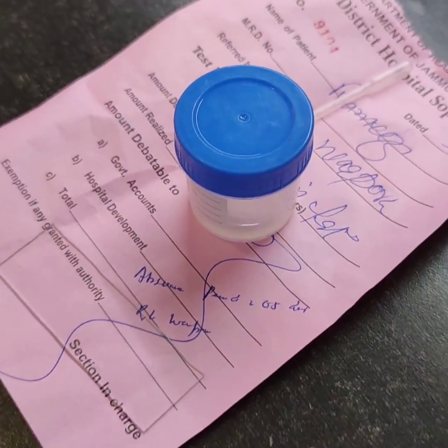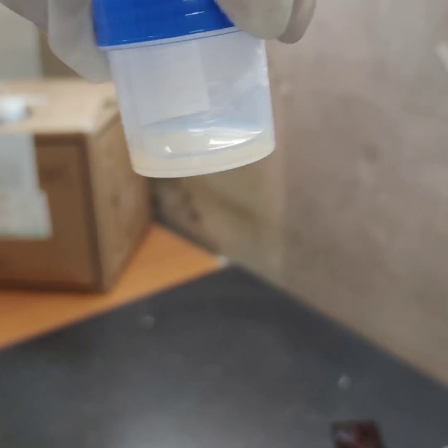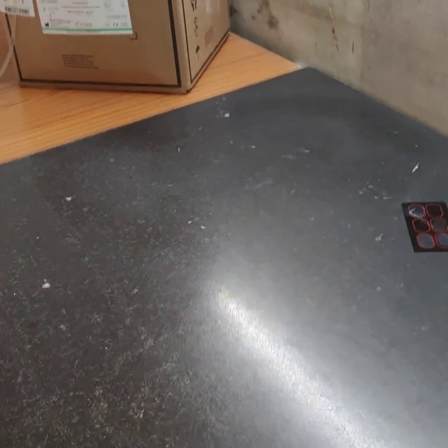Our today's test is semen analysis. First take the sample and then incubate it for at least 20 minutes.